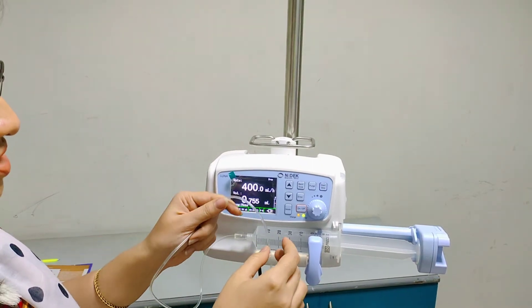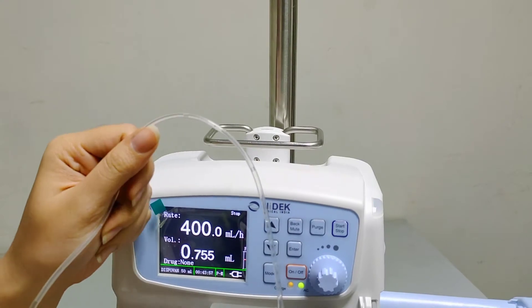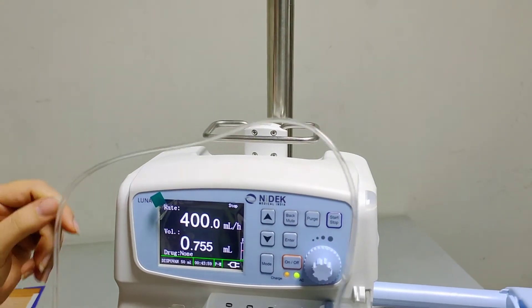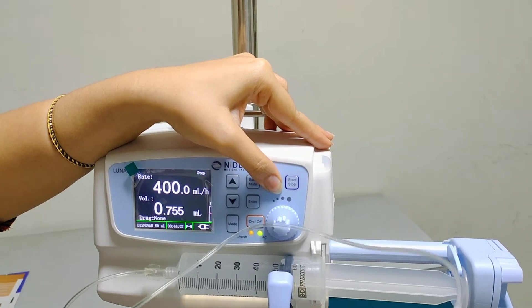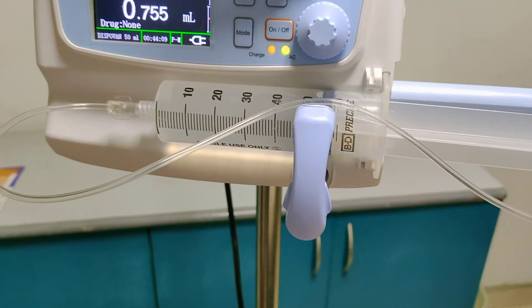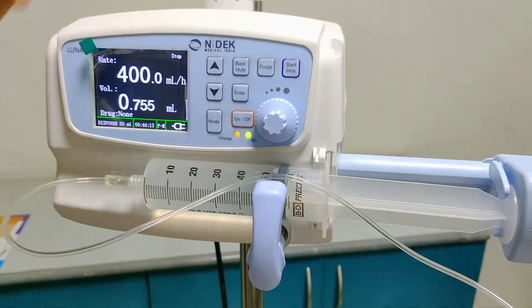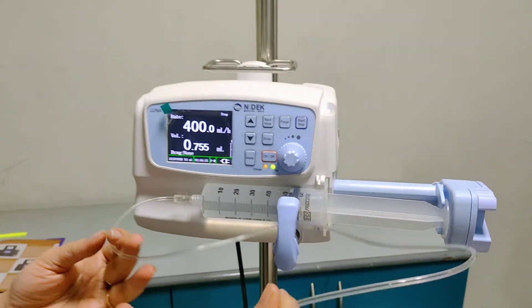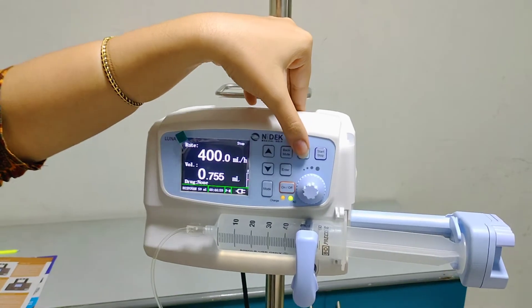After setting the syringe, we can see there are air bubbles in the PM line. The machine is in stop condition, so we need to long-press the purge key. In that case, the fluid will move through the PM line and the air bubbles will get released. After that, we will release the purge key and the machine will be in stop mode again. To remove the air bubbles, we need to press the purge key.